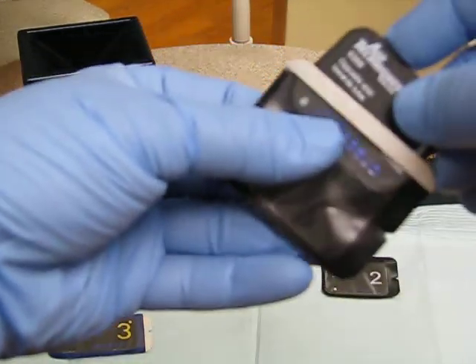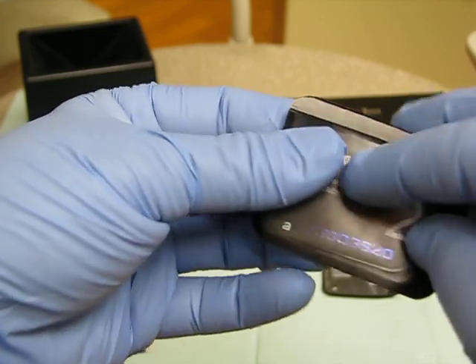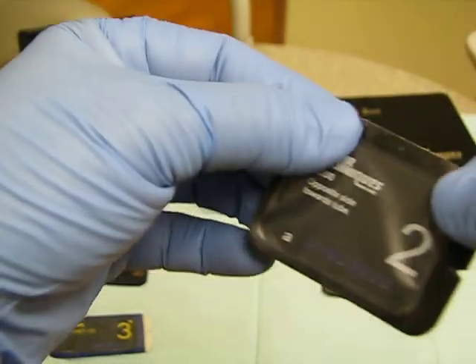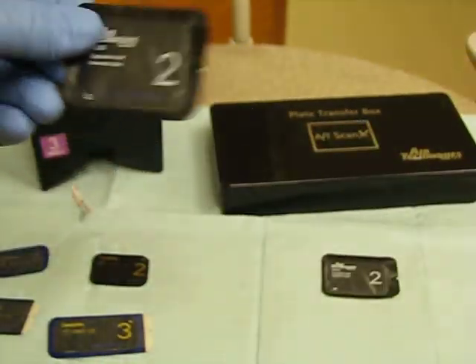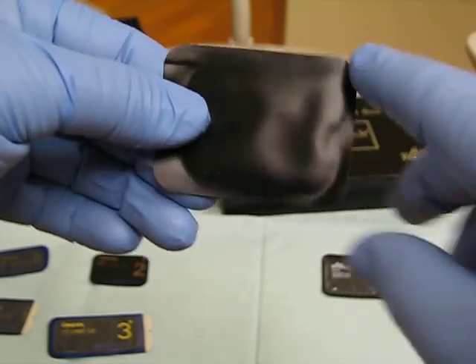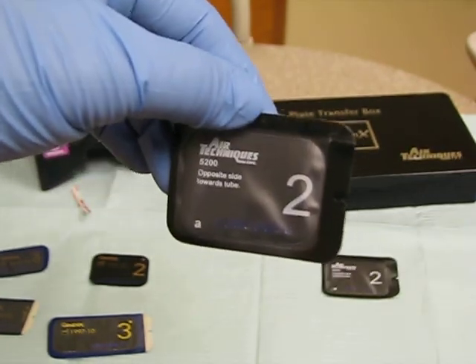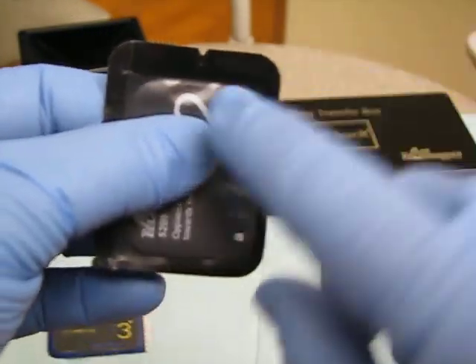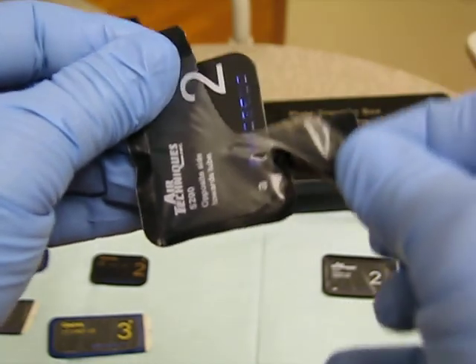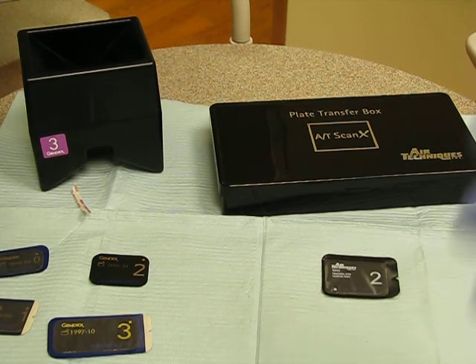The way the barrier works: you place your sensor in the barrier so you can read the information. There's a little sticky tag right here — you remove it and make sure it's sealed. Now if you were shooting at this sensor, you would be shooting at the dark blue or black side, depending on the barrier. Once you take the image, the little V-section that's already slipped — you would rip it carefully and drop it in the box without touching it.